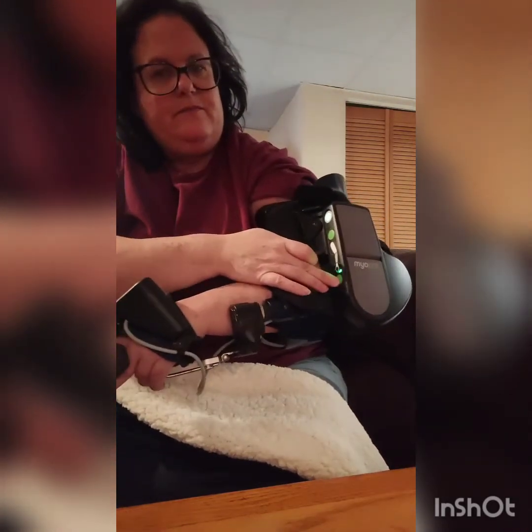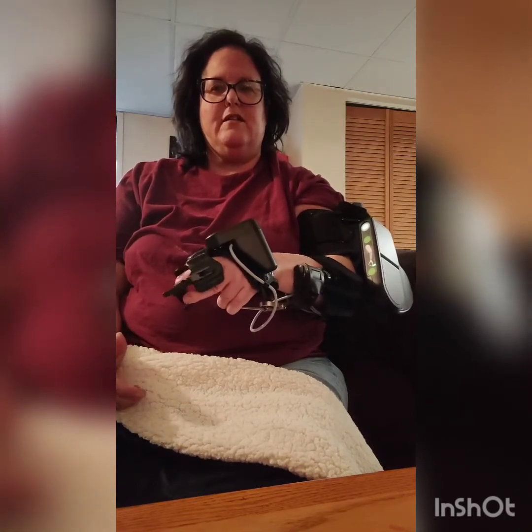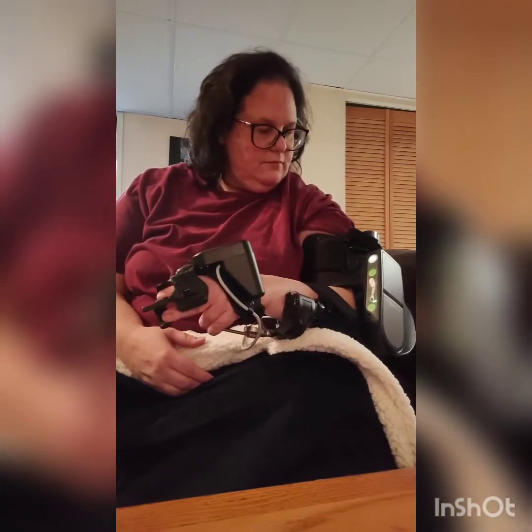So then if I change it to that — oops, my hand is stressing out. So it'll keep doing that. I have to relax everything. And if I don't relax, I'll just keep doing that. All my nerves and signals need to be relaxed.